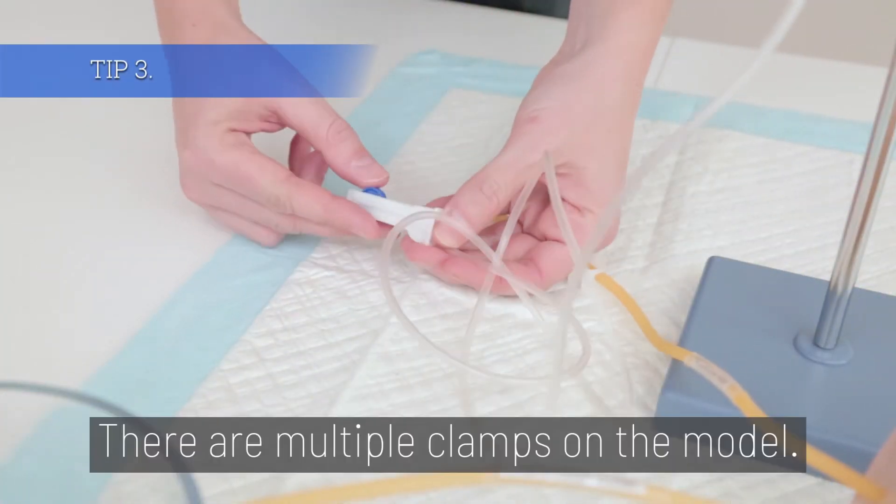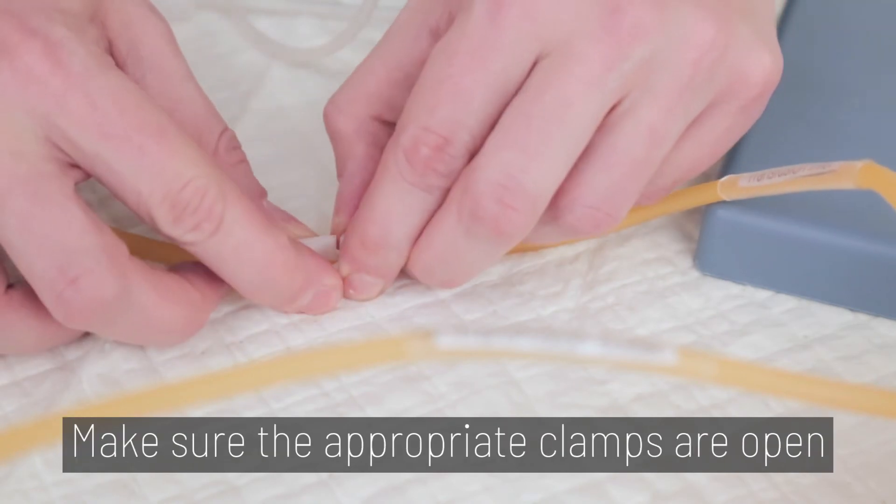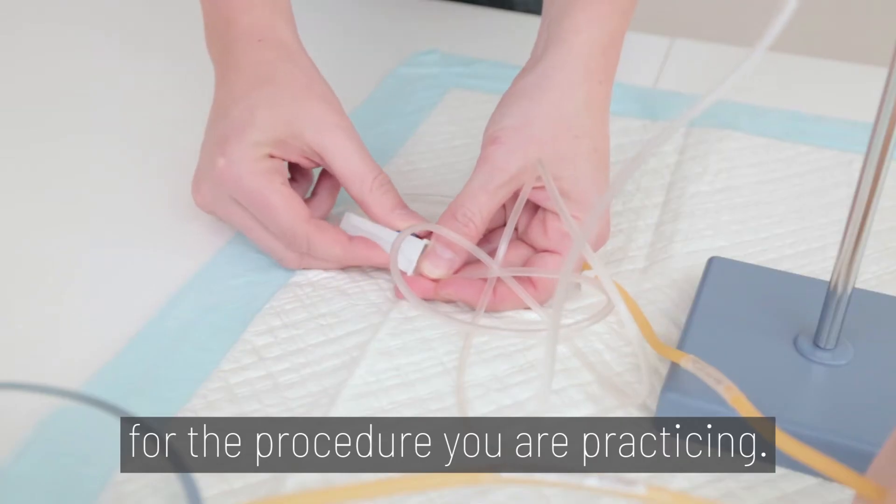Tip 3. There are multiple clamps on the model. Make sure the appropriate clamps are open for the procedure you are practicing.